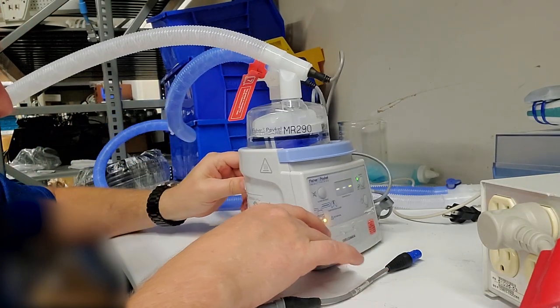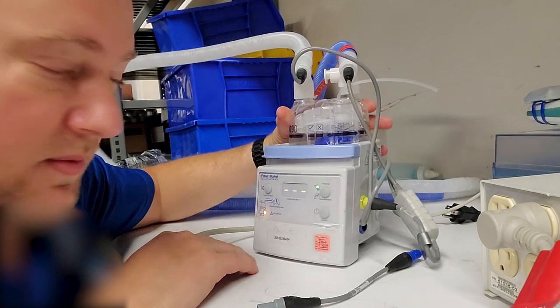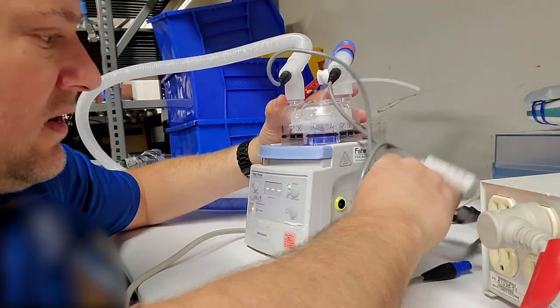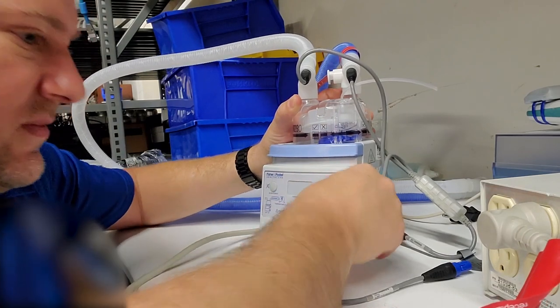So that means that you are not going to get correct electrical safety readings on this guy, usually not anyway. Let me disconnect that guy; I'm going to shut it off.